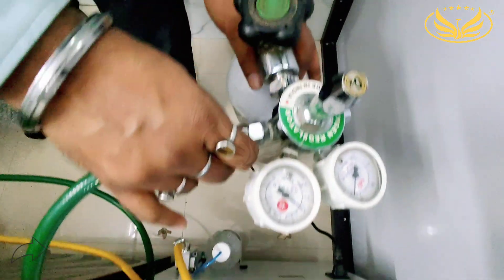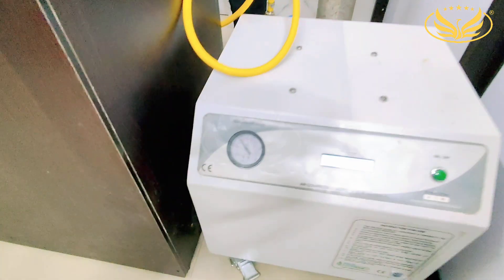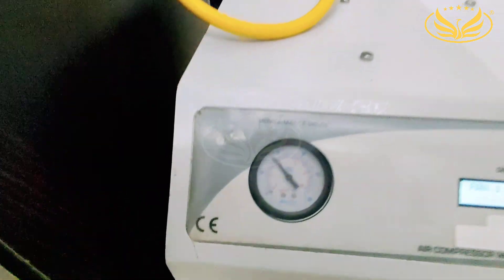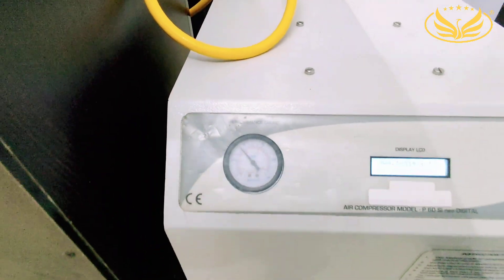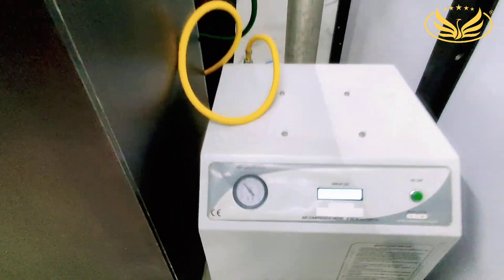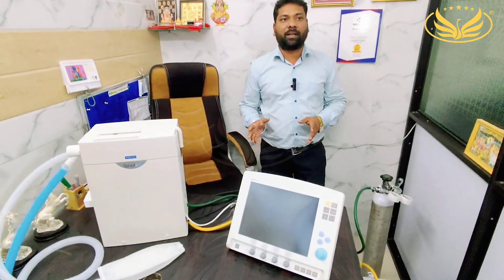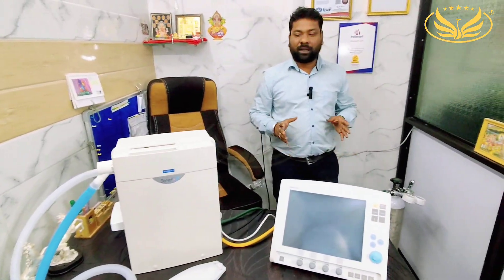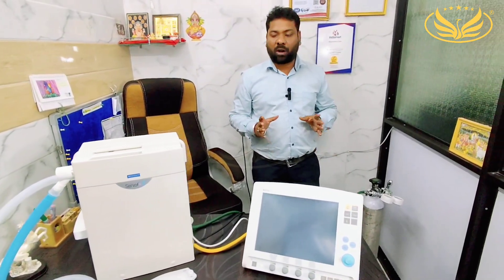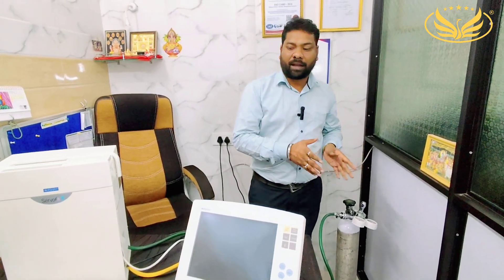Because this ventilator is very sensitive, we have to take care about the pressure. If the pressure increases from 4 bar to any higher value, there is a possibility of the module getting damaged. We are telling all our customers to be very cautious about the pressure of oxygen and air.